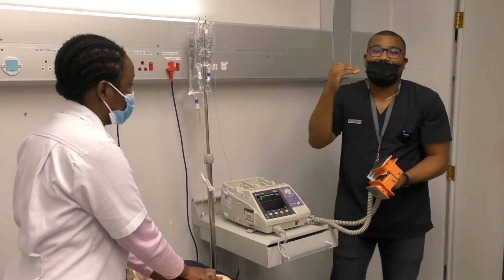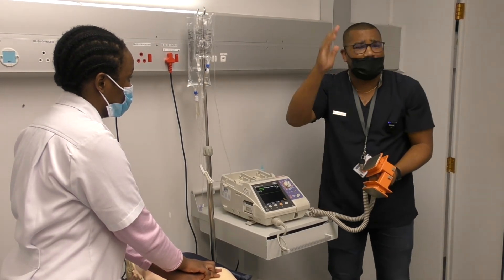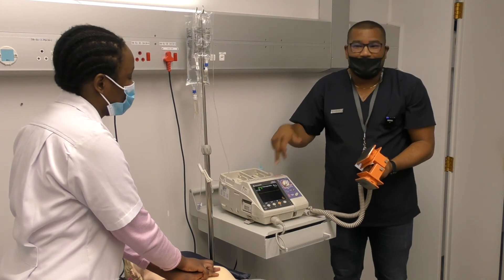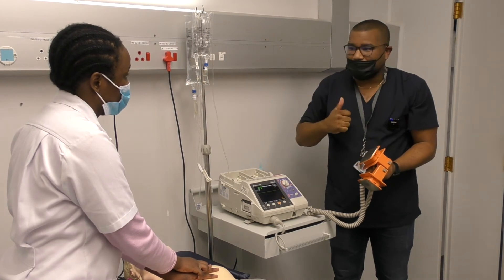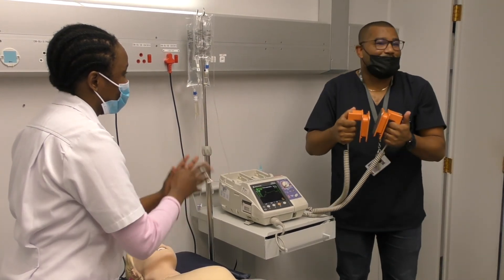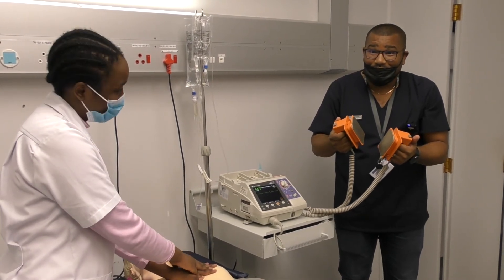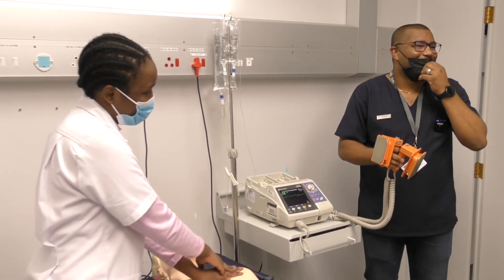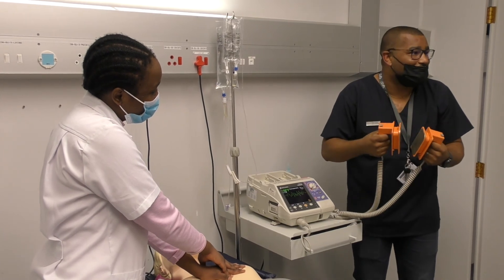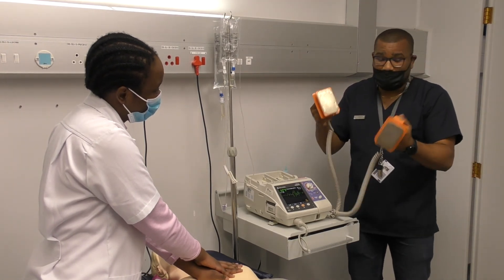This is a biphasic machine, so we're guided by universal guidelines, but the manufacturer will guide you on the safest starting option. Even if guidelines say 200 joules, the manufacturer here specifies starting at 150 joules. Remember you'll use a staggered approach, so you'll work up to 200 joules anyway. When applying gel, you do a quick wrap to spread it evenly. The instructor demonstrates and asks for feedback — the group confirms the gel should be spread evenly across the paddle face.